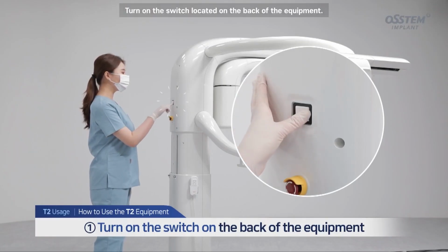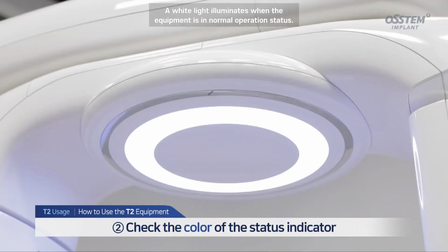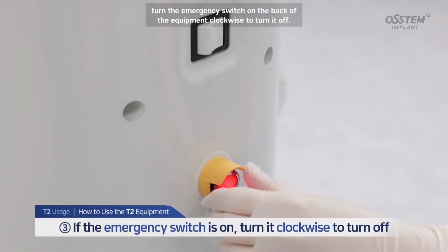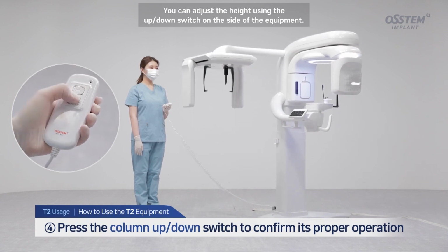Turn on the switch located on the back of the equipment. A white light illuminates when the equipment is in normal operation status. If the status indicator is illuminated red, turn the emergency switch on the back of the equipment clockwise to turn it off. You can adjust the height using the up-down switch on the side of the equipment.